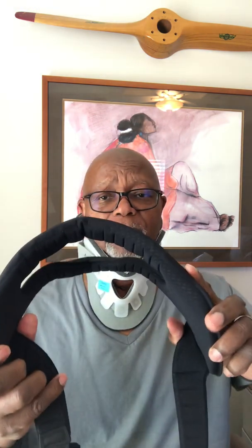A cage or insertion is placed in there with some type of bone graft, and then your body's natural fusion process creates a much stronger neck structure. That's where this unit comes in — the bone stimulator. It basically accelerates the bone growth process. It's worn around your neck like this, and can be worn with or without your neck brace on. I tend to wear it with my neck brace on.